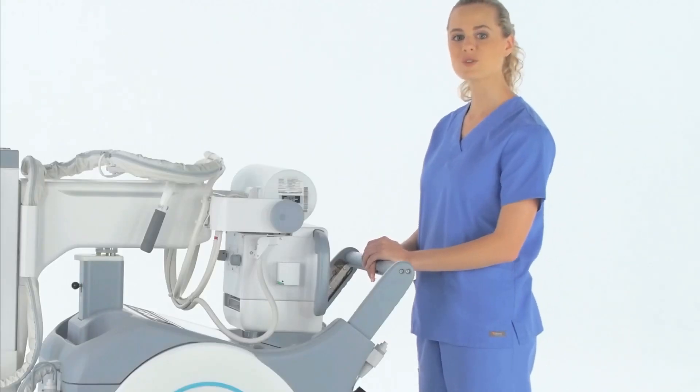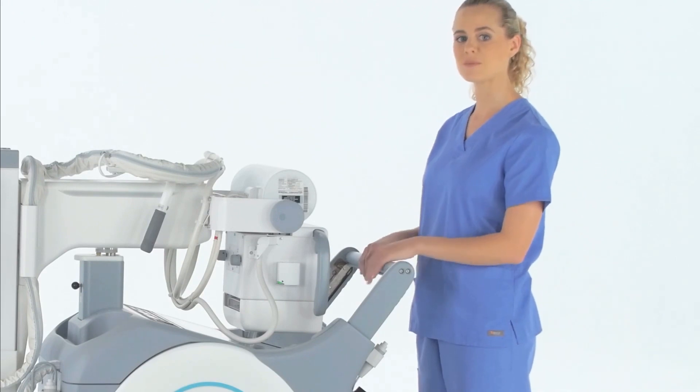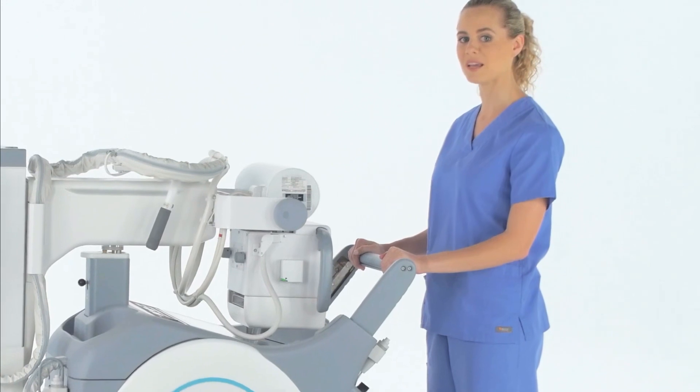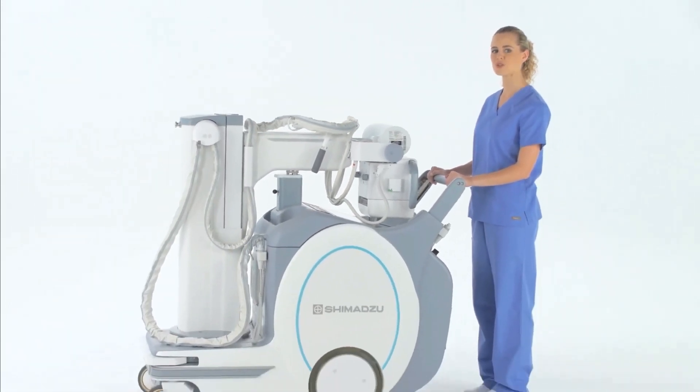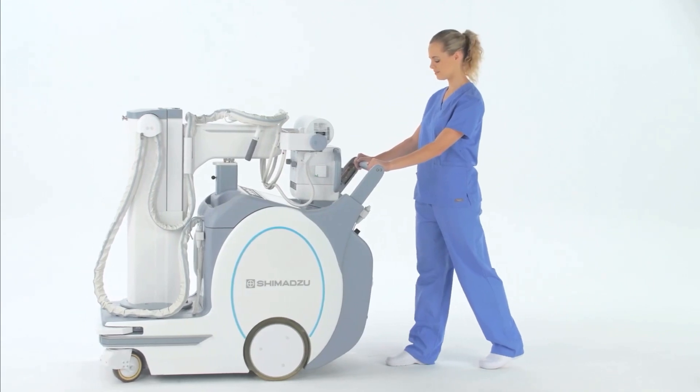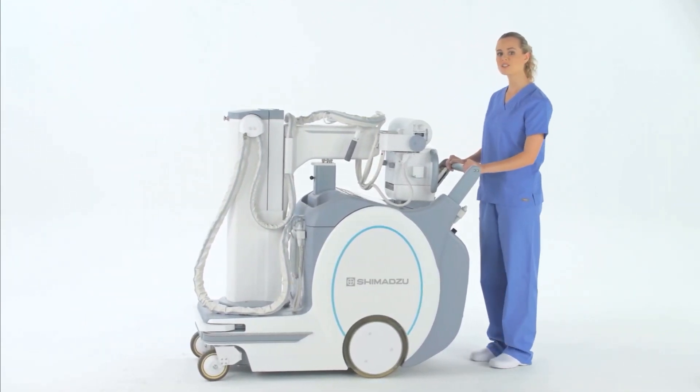The power assist driving system is easily engaged by simply placing your hands on the drive handlebar and squeezing to release the built-in brake. With a bit of light pressure you can go forward, reverse, or turn with ease.